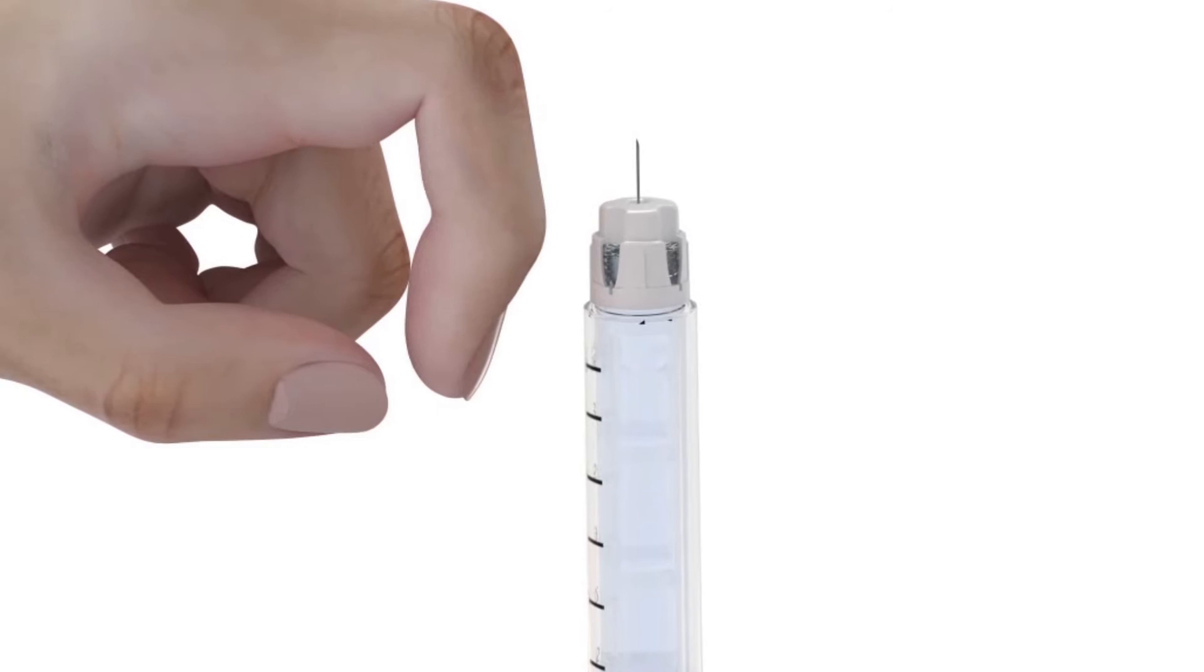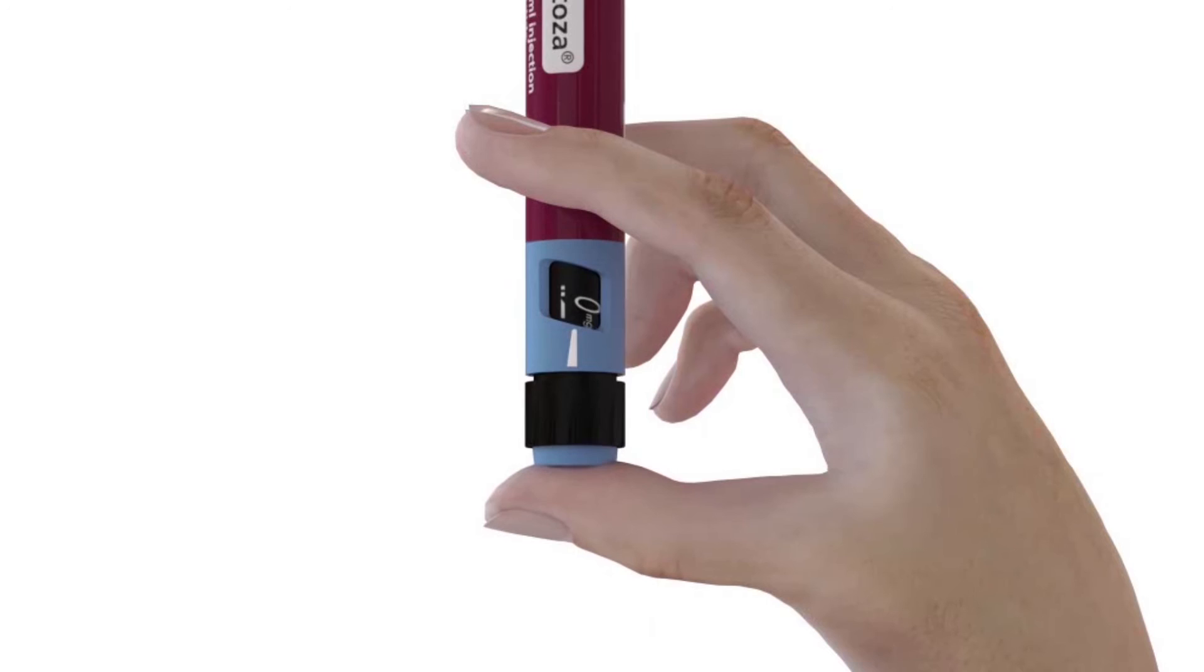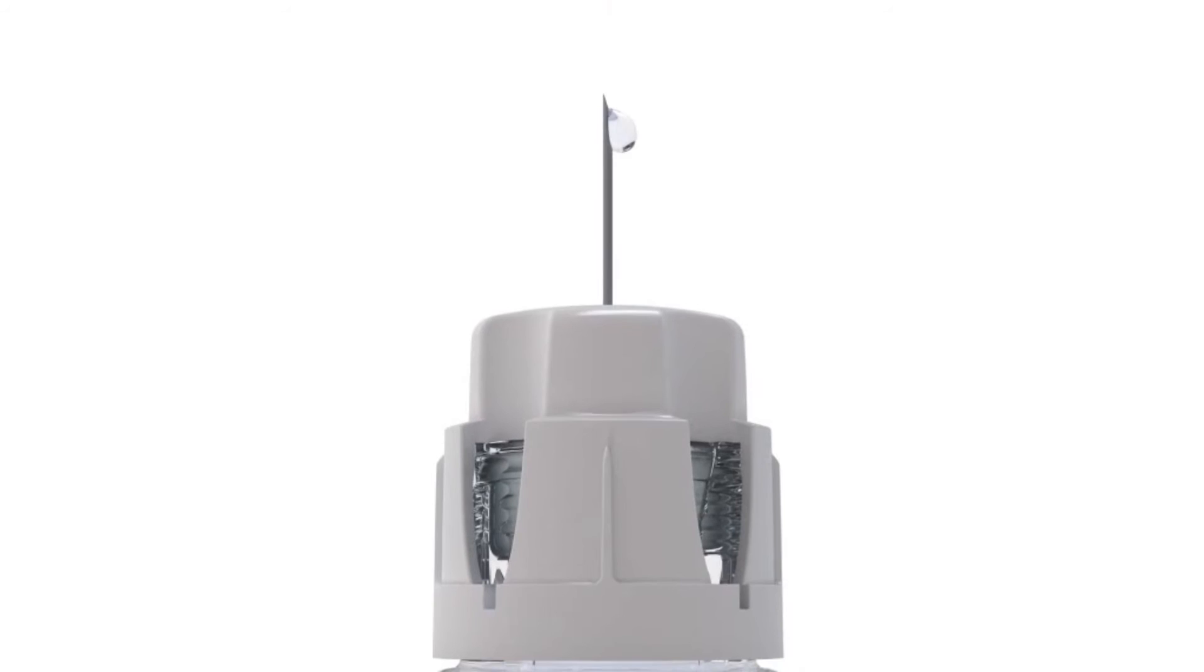Tap the pen gently a few times to make any air bubbles collect at the top. Press the push button all the way in and make sure that a drop appears.